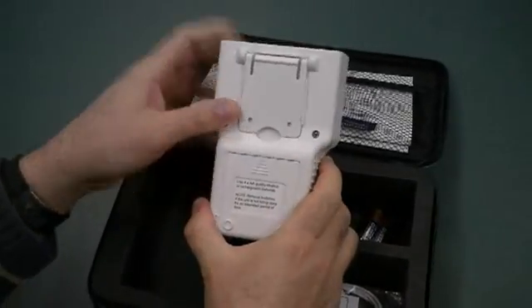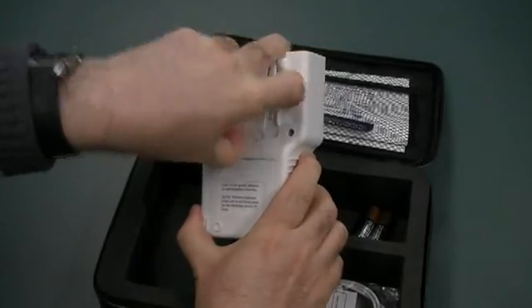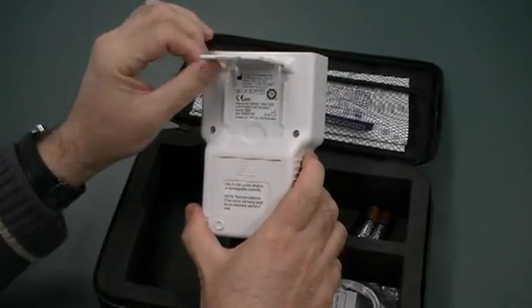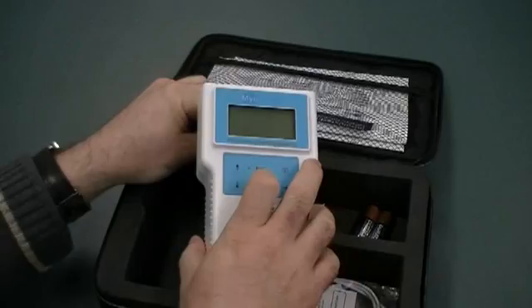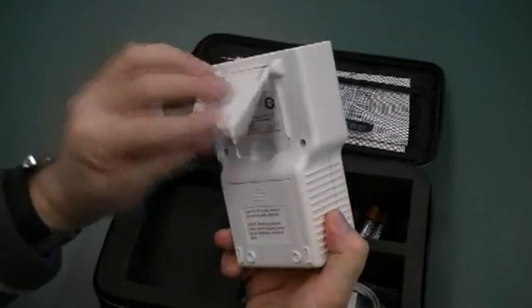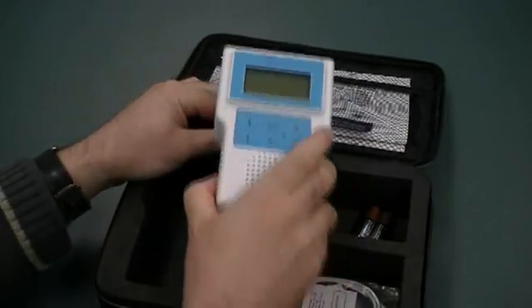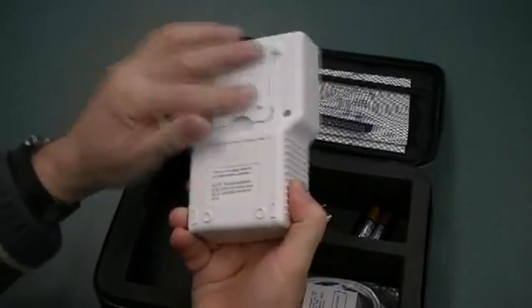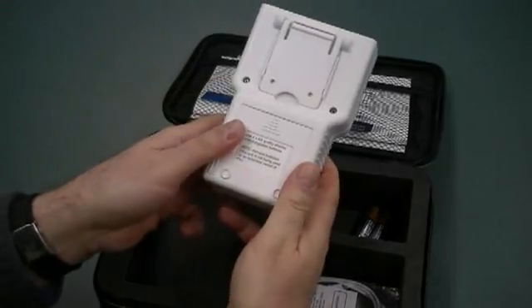We flip it over. We've got our little flip-up stand that allows you to set up the unit on the table. As long as you're moving it with the idea that it closes down like this and avoid closing on there, it works pretty well. And then there's the battery compartment.